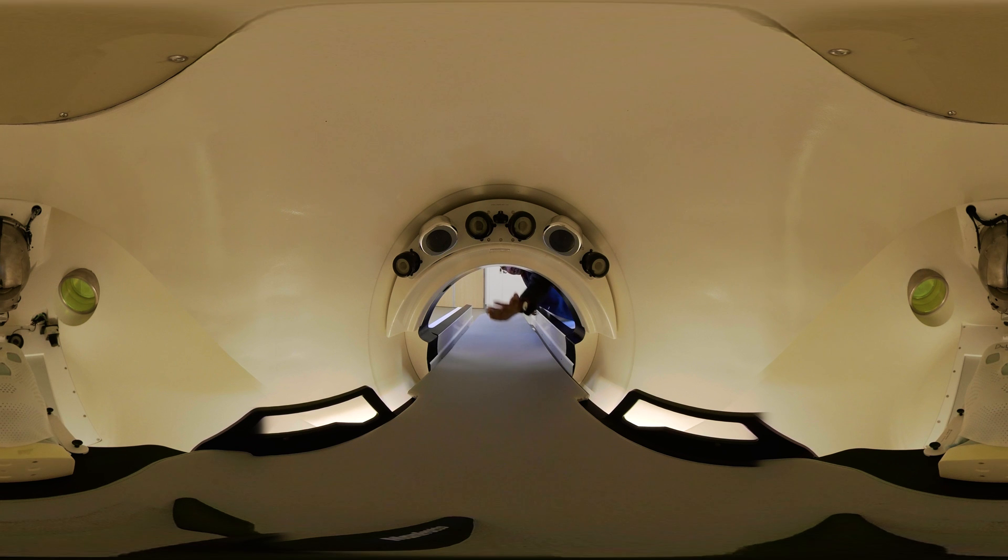Towards the bore of the machine, we have another four cameras watching the patient. We also have speakers and microphones, so whenever the patient talks, the operator can hear from outside. The operator can see the patient from seven different angles, which is pretty amazing. For other machines, you have to go out and buy cameras, stereo systems, and all that separately. Here, everything is included and fully integrated as part of the system. We also have air being pumped in so the patient is comfortable inside, and we can pipe music through the speakers so the patient can relax. It's a nice, pleasant environment inside.